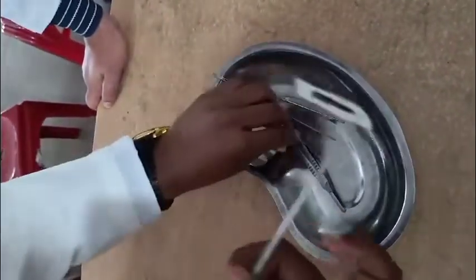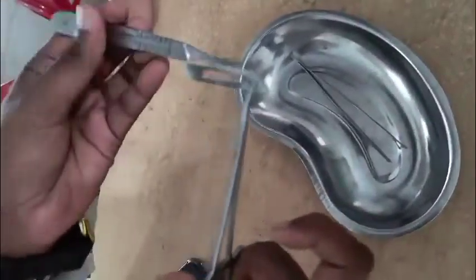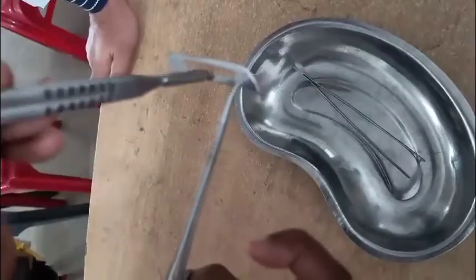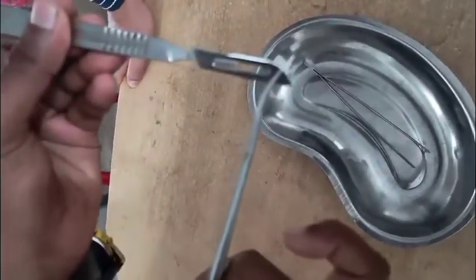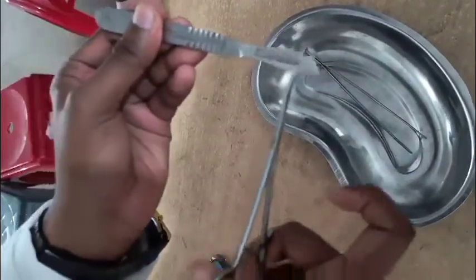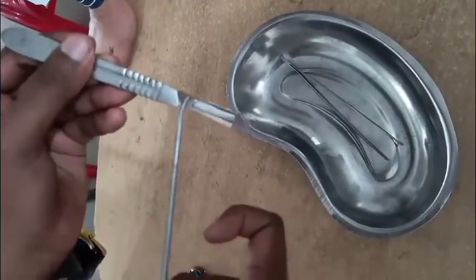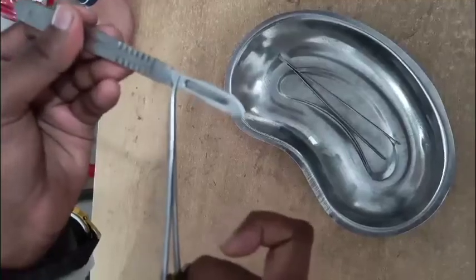We will grab the blade and after that we will grab the BP handle. There is an edge on the handle; according to the edge we will set this BP blade to the BP handle, and that has been set. After completing it, you have to put it out.